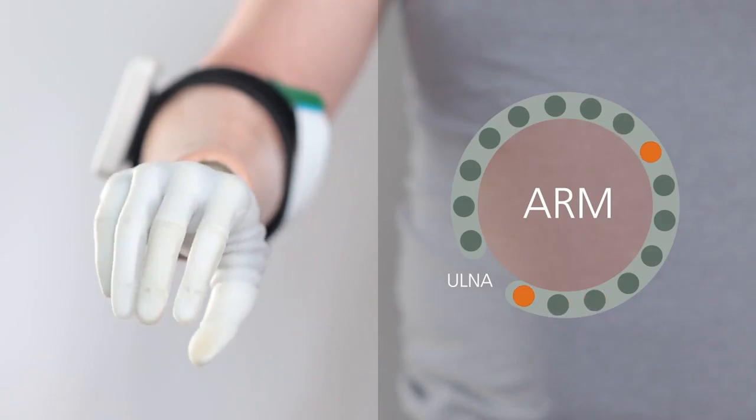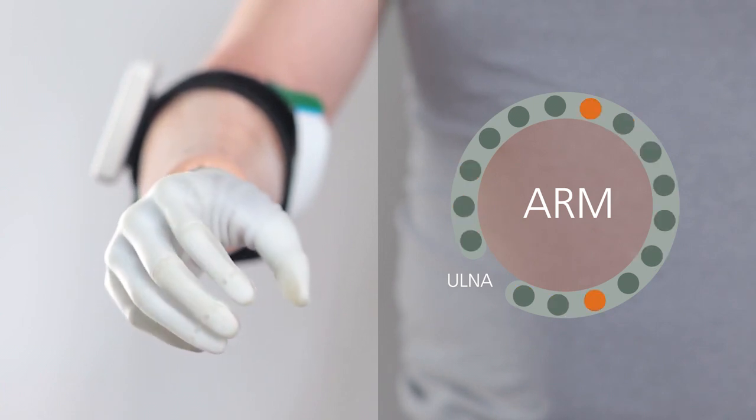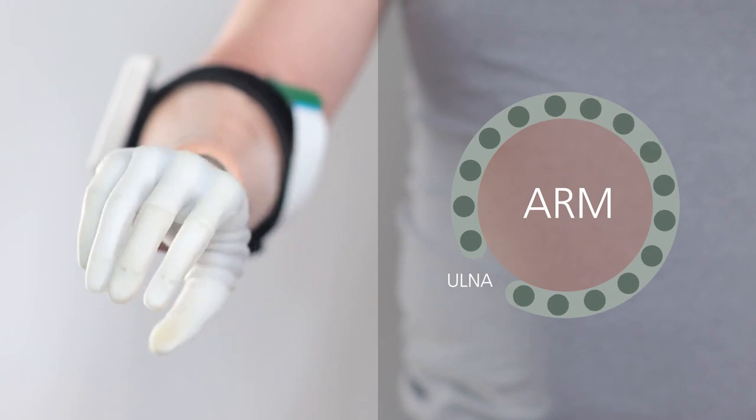This feedback can be combined with the aperture information so that, besides knowing the direction and speed of ongoing rotation, the user can also tell whether the hand is open or perhaps half-closed.